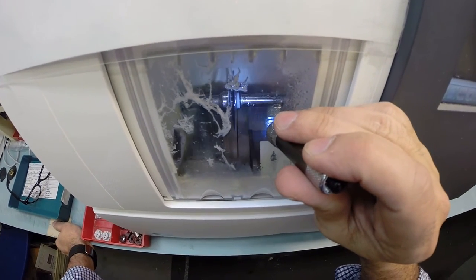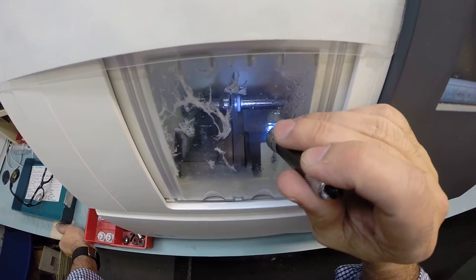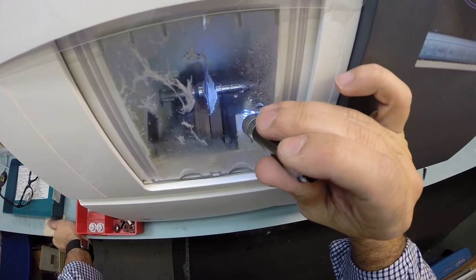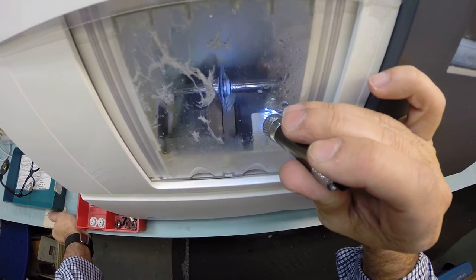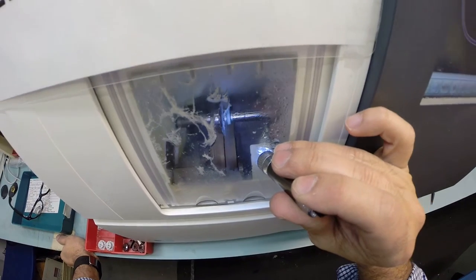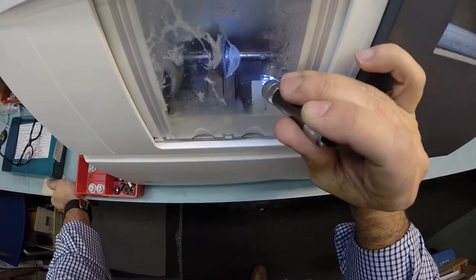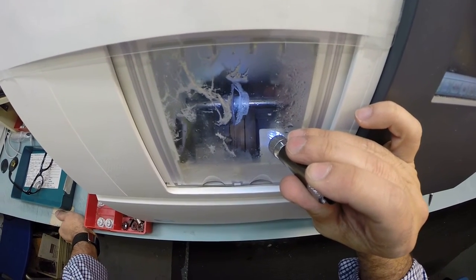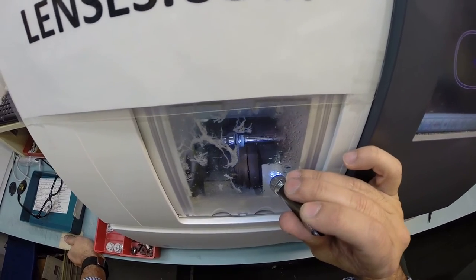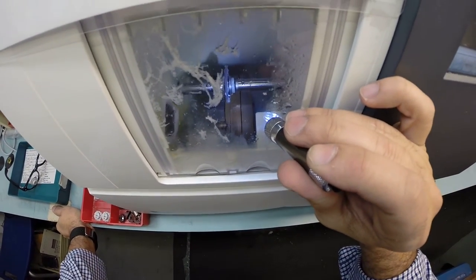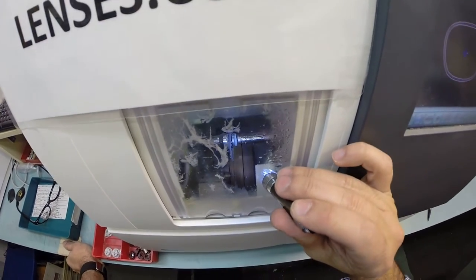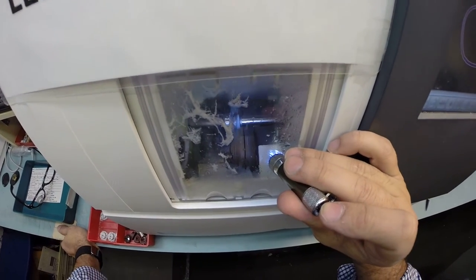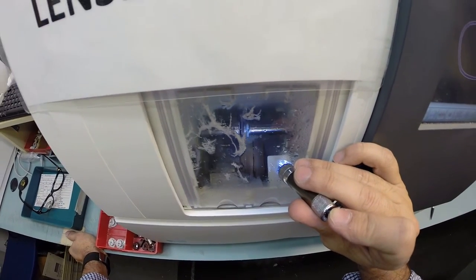And I will turn on the flashlight so you can see as it will drop down onto the cutting wheel. Now, your lenses are made out of polycarbonate. Polycarbonate is 40% thinner and lighter than regular plastic. It is virtually unbreakable. Your lenses are bulletproof up to .22 caliber and have both UVA and UVB protection built into them. We know what the sun's harmful ultraviolet rays can do to your skin, where your eyes are eight times more sensitive than your skin. So you have permanent sunscreen for your eyes.